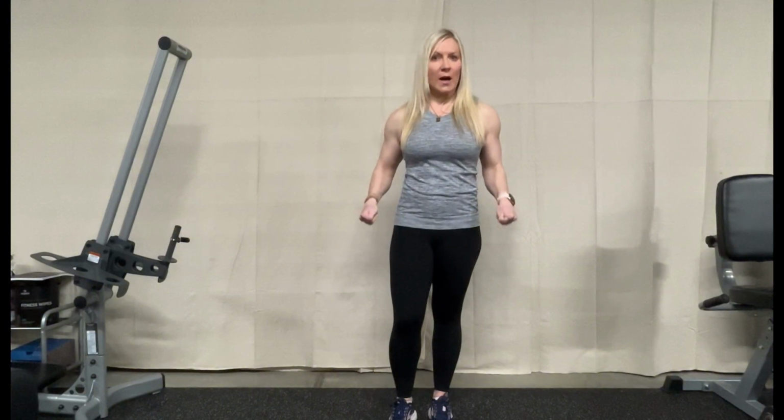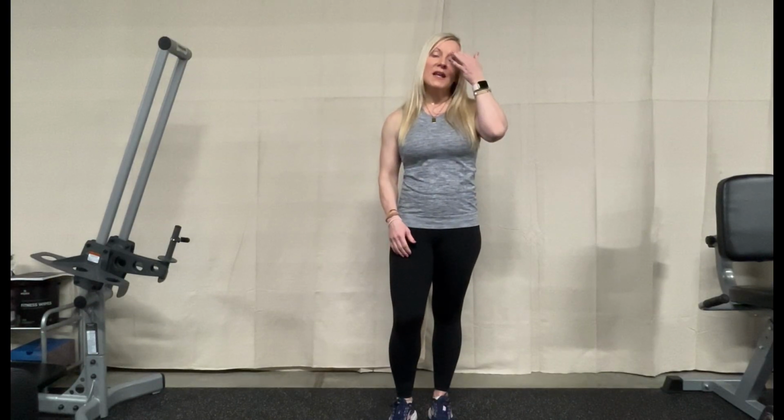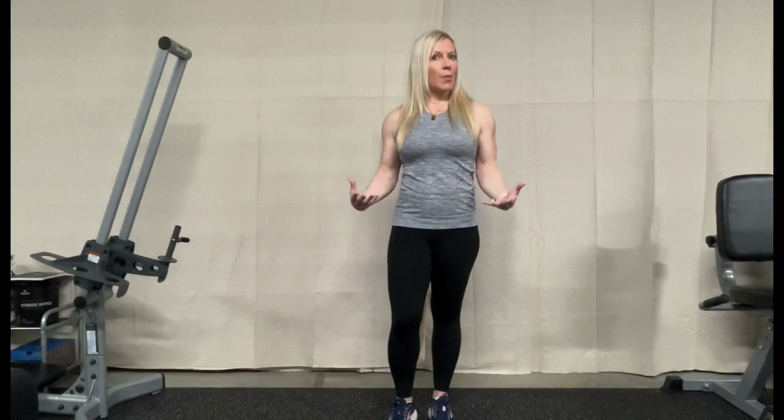I've had patients who will actually carry the walker or carry the cane instead of using it and placing it. That can be a little bit tricky, because then the assistive device is not providing that assistance, it's actually providing an increased risk for falls. So that is something very important to take into consideration. Providing this video just gives you a little bit of an idea where things need to be, that way you protect your body in the meantime while you're utilizing your devices.